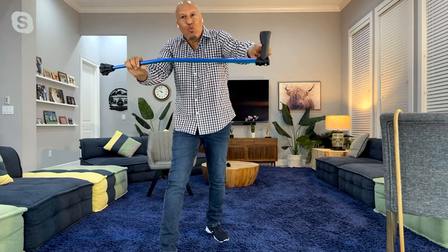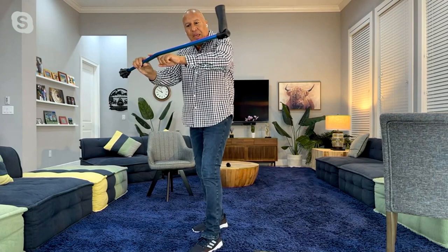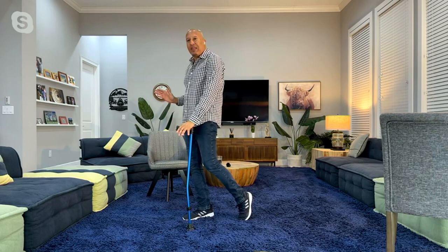This isn't that way, because of one thing — look at this: the balance point. The shaft of the cane goes right through the middle of the grip. That is really important because it's different than a traditional cane. When I put weight on the old cane, it's going to fall backwards because of the way it's shaped. This one goes right through the center of the grip. This is magical. So when I put the cane down at any angle or vertically, it doesn't make any difference — I'm going to have great confidence and wonderful balance.